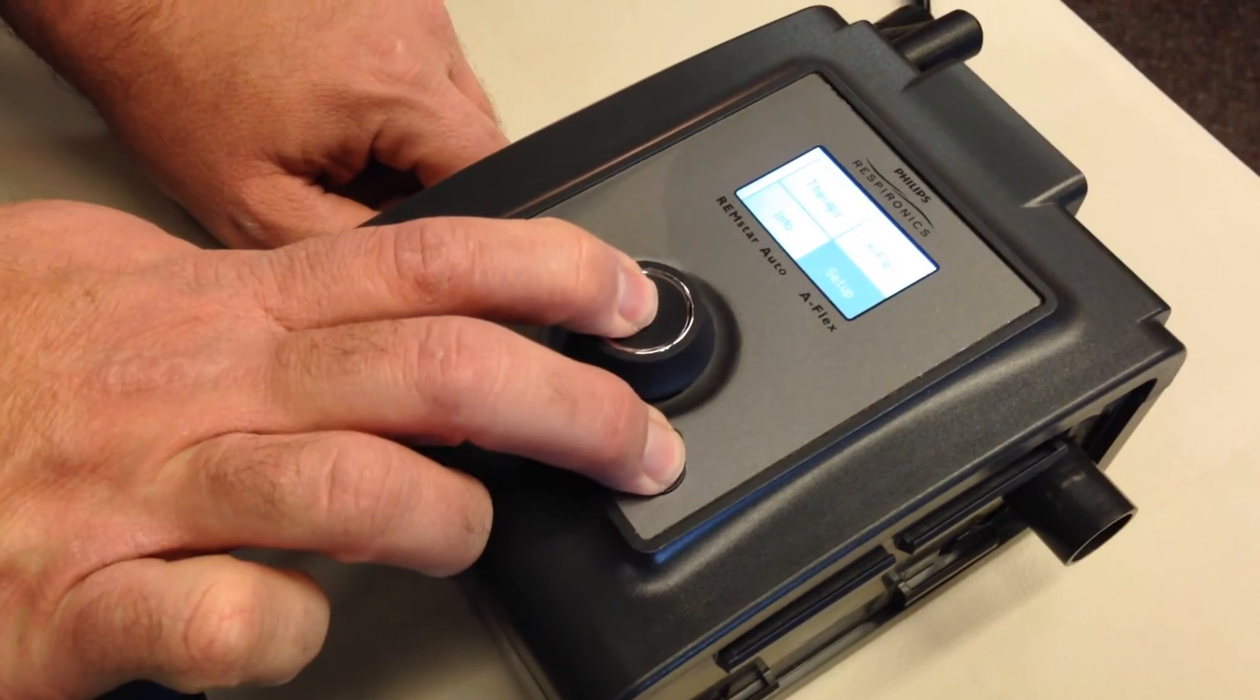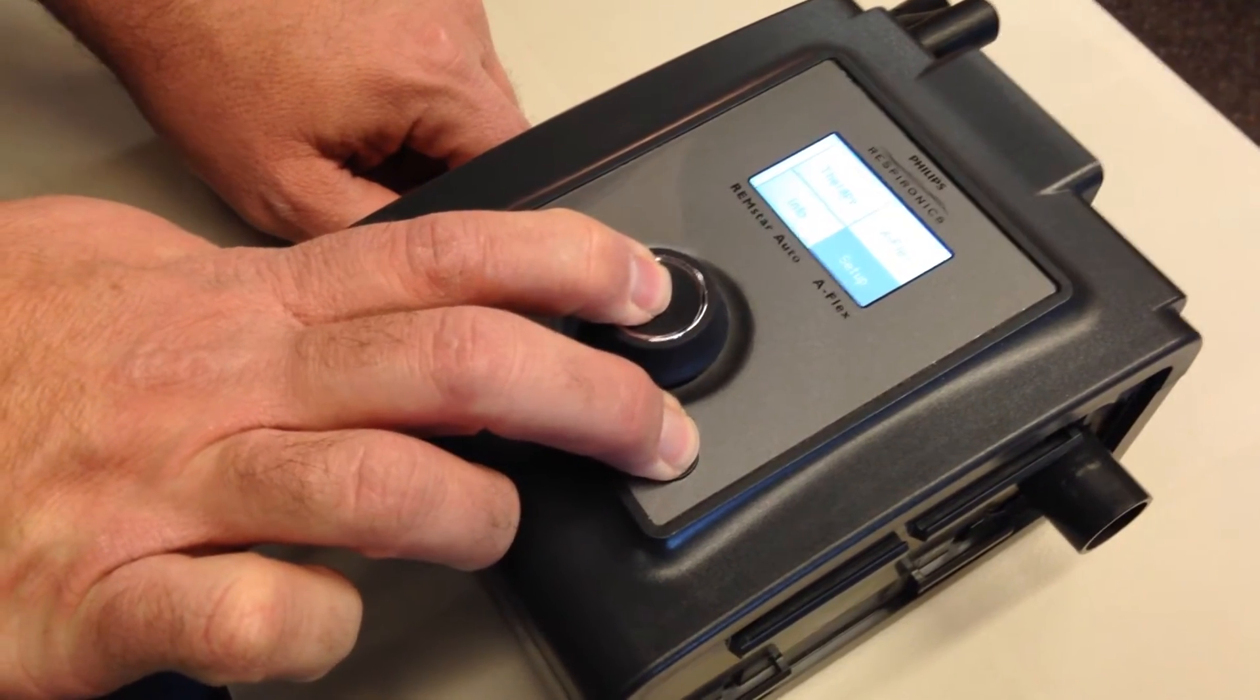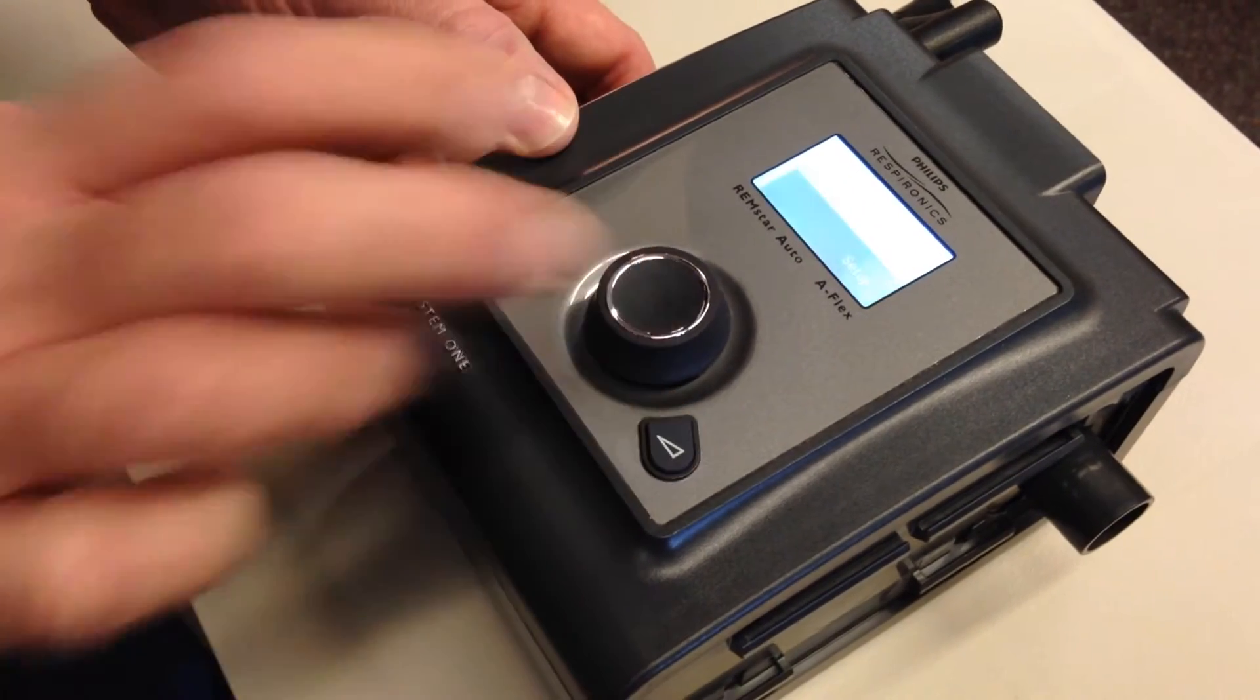Press and hold both buttons down at the same time until the machine beeps, then release.